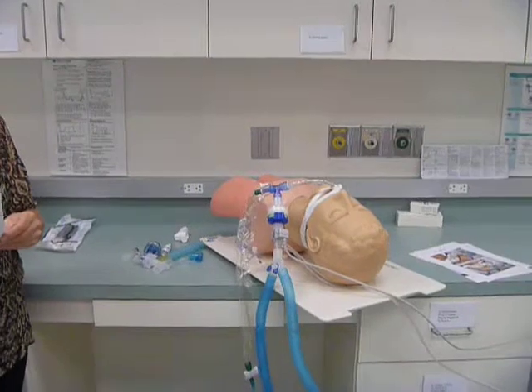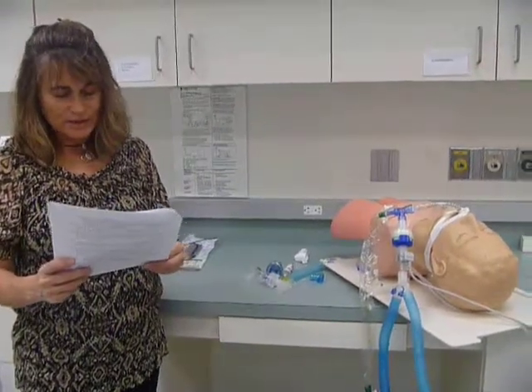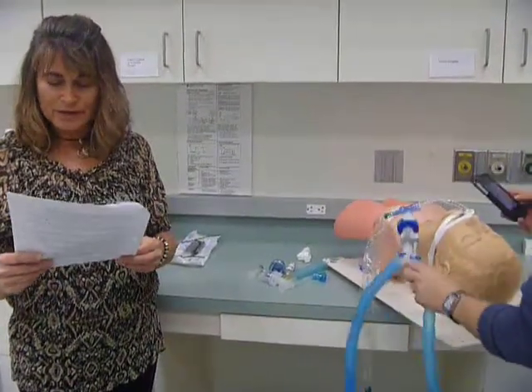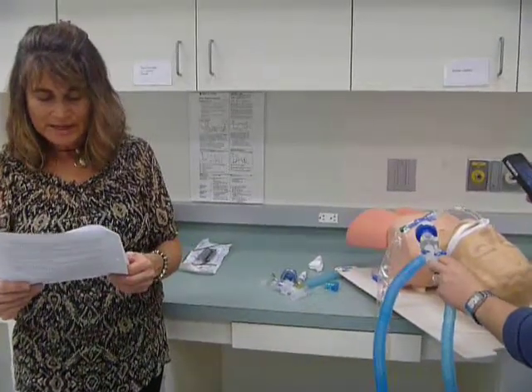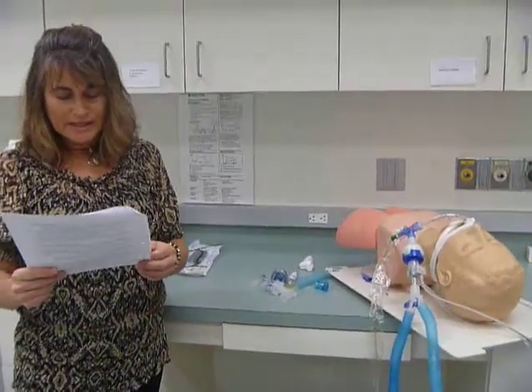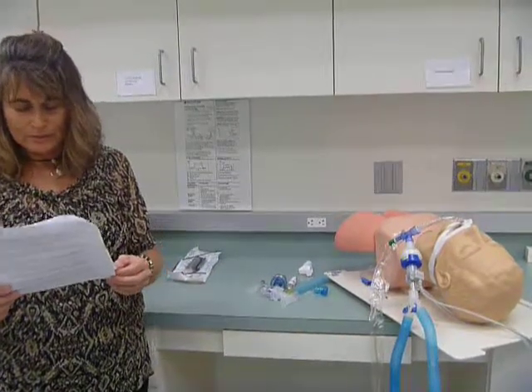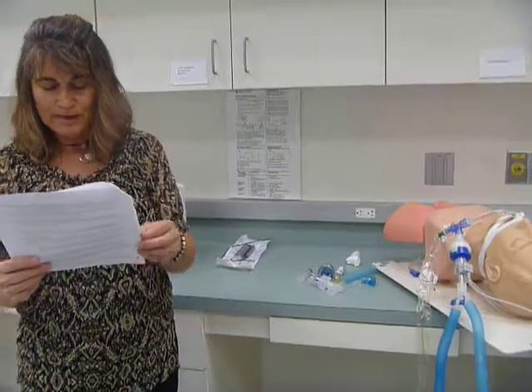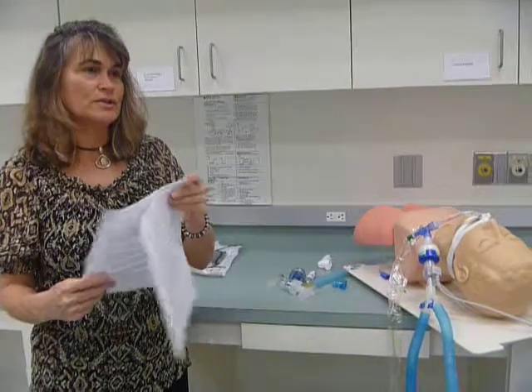By using infrared technology, an end-tidal CO2 adapter can be placed in line with the ventilator circuit and can measure the amount of carbon dioxide that is exhaled from the patient's lungs. To get a proper waveform, the adapter needs inhaled air and exhaled air. The adapter may need to be taken out of the circuit on occasion and replaced with a dry, clean adapter. Suspect a buildup of water, medication, and debris on the adapter if the monitor waveform appearance changes.